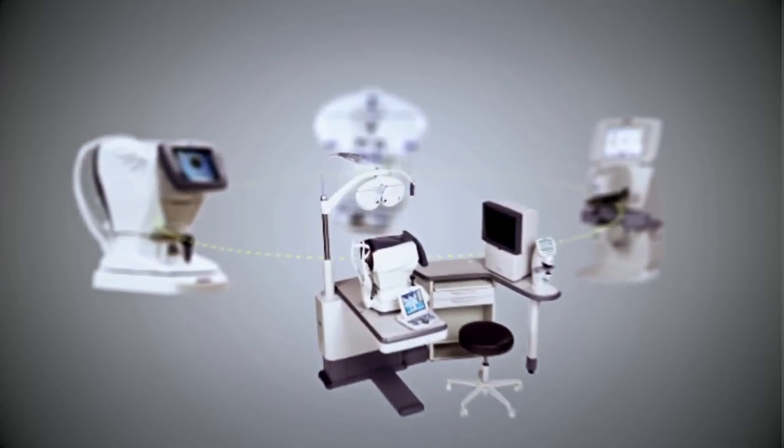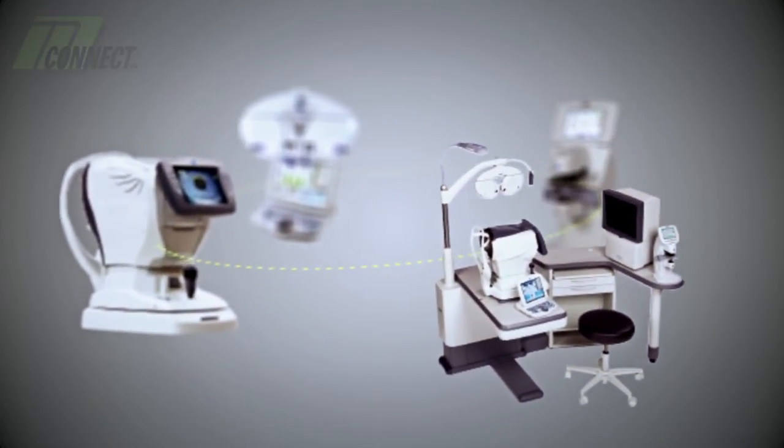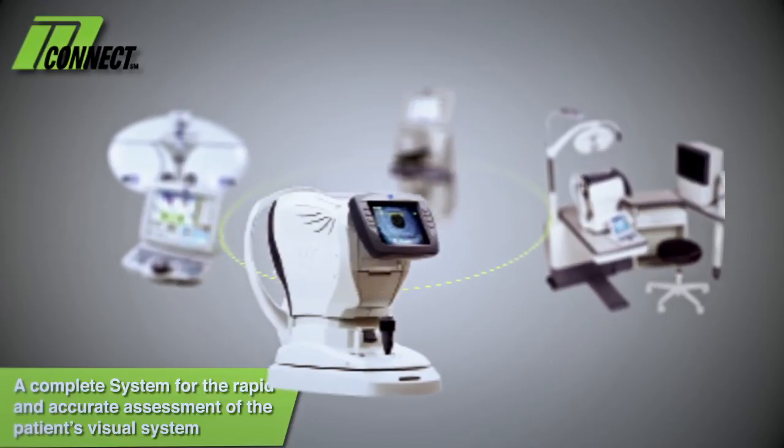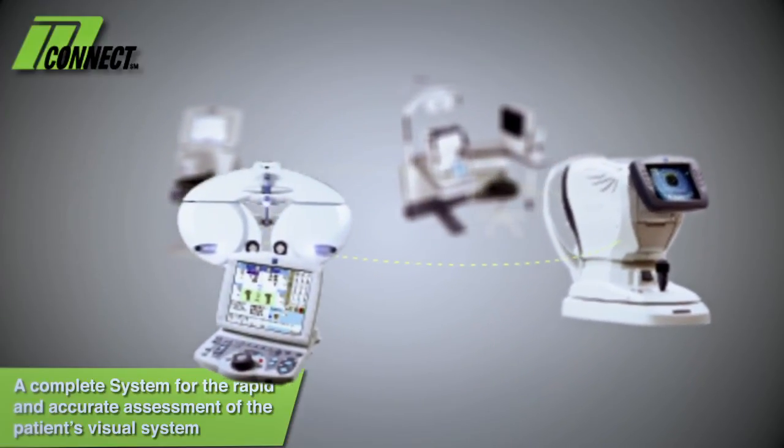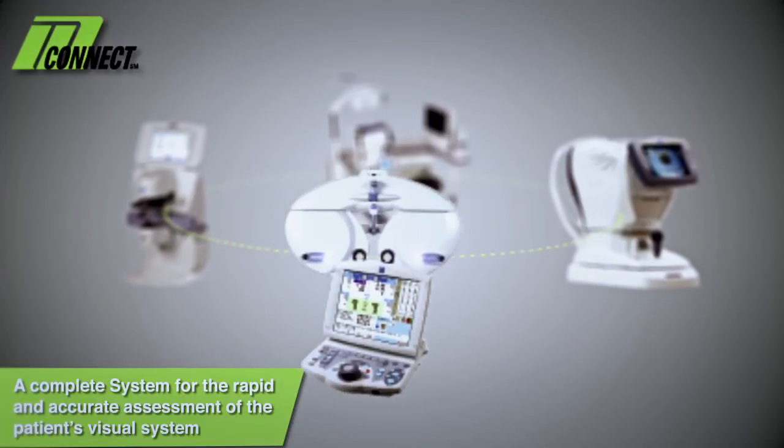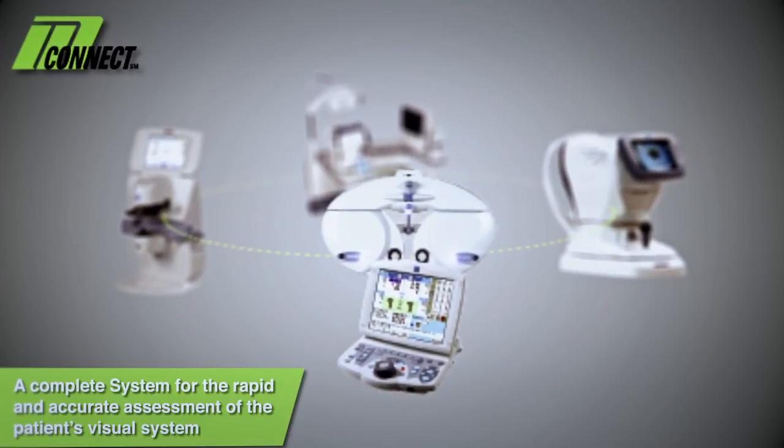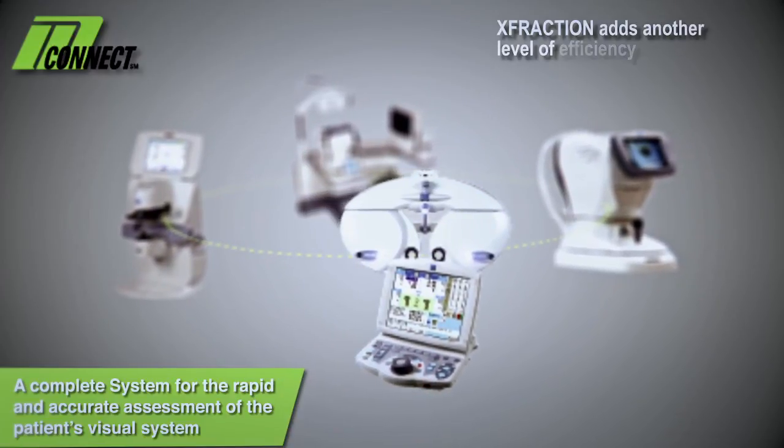The OPD Scan 3 from Marco combines dynamic sciascopy technology and auto-tracking XYZ for standout speed and accuracy to generate relevant, usable data in a short period of time. When combined with the TRS-5100, X-Fraction adds another level of efficiency.